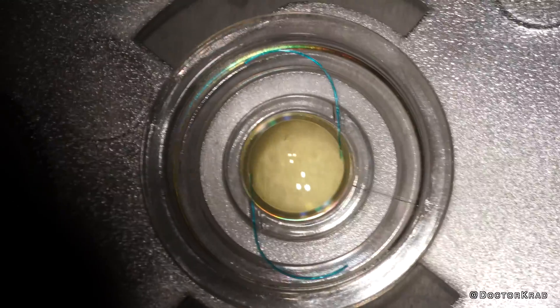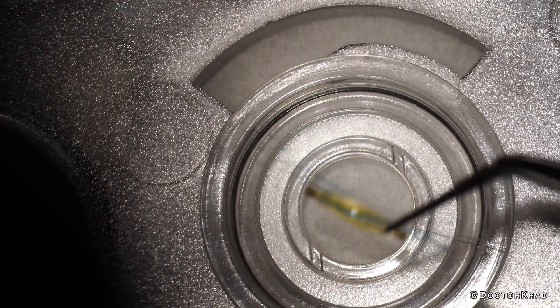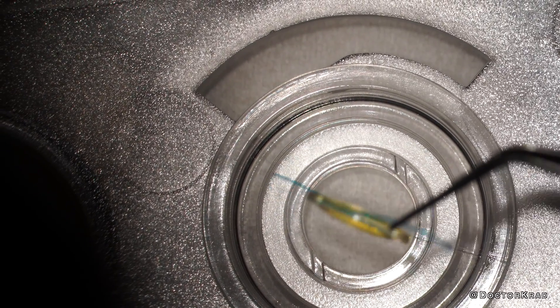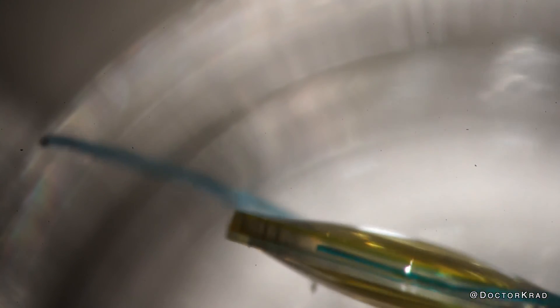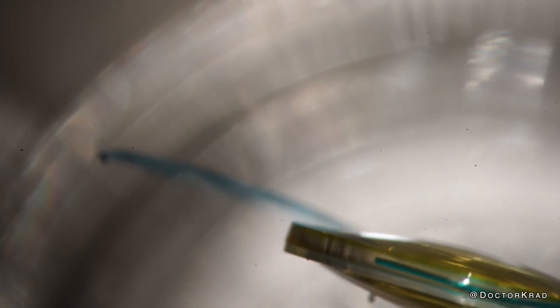This is the light adjustable lens. It's a three-piece lens with a photoreactive silicone optic and blue PMMA haptics. It has a yellow cap on the front which is for UV protection — it's called Active Shield — but the lens itself is actually clear.